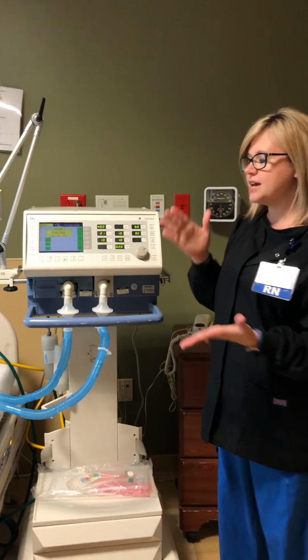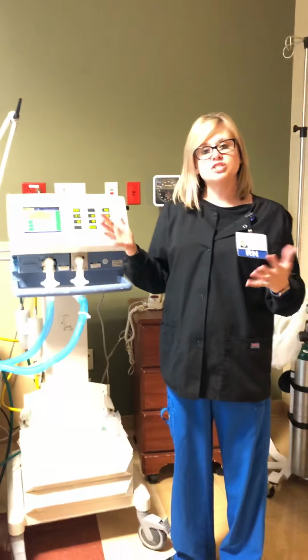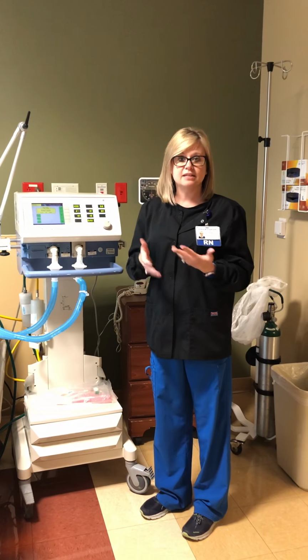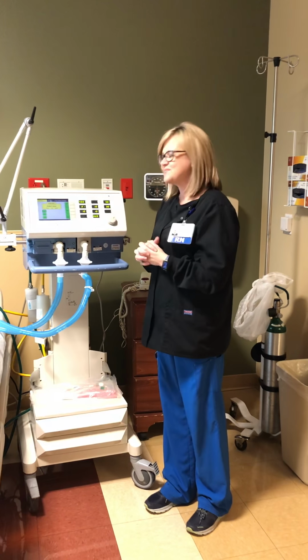These are some things you can do just to help troubleshoot while a respiratory therapist or the ICU nurse or even the MD can get in the room to troubleshoot. Okay? Thank you.